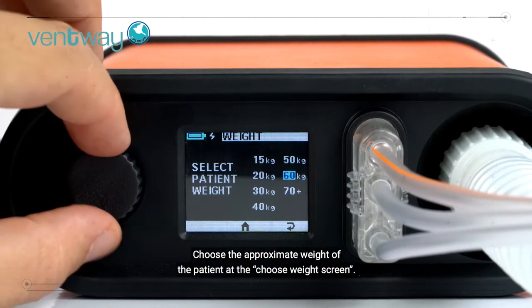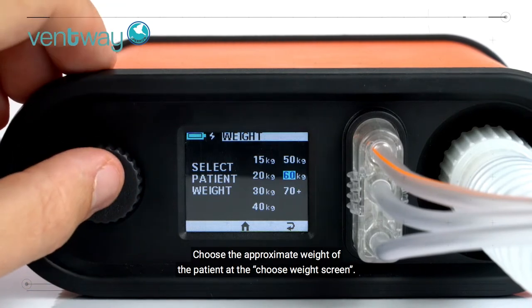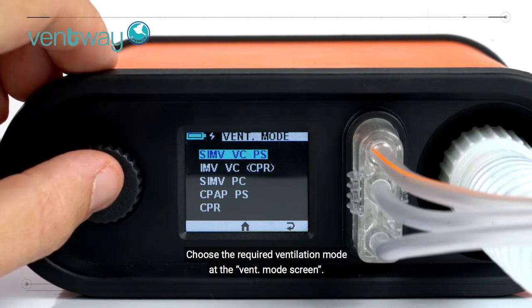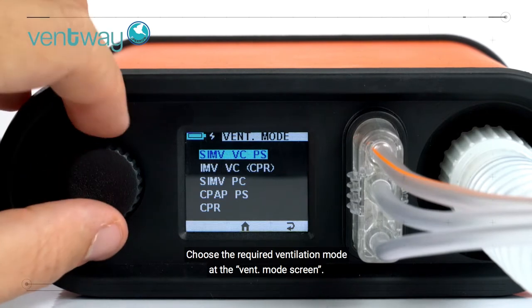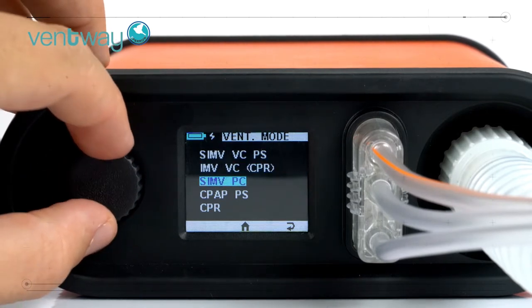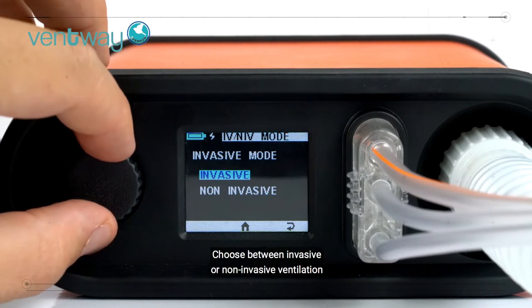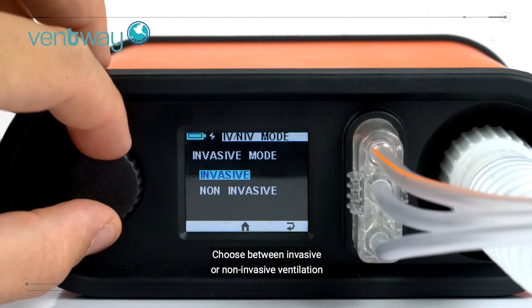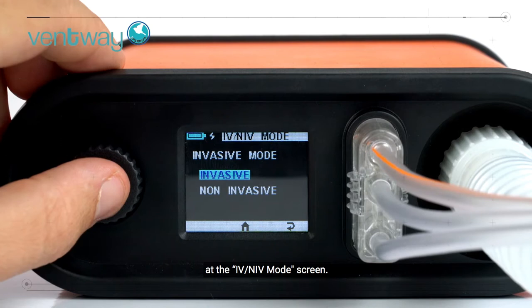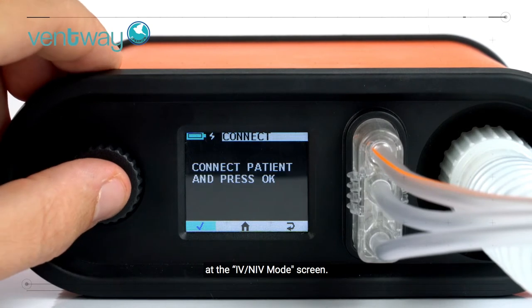Choose the approximate weight of the patient at the choose weight screen. Choose the required ventilation mode at the vent mode screen. Choose between invasive or non-invasive ventilation at the invasive non-invasive ventilation mode screen.